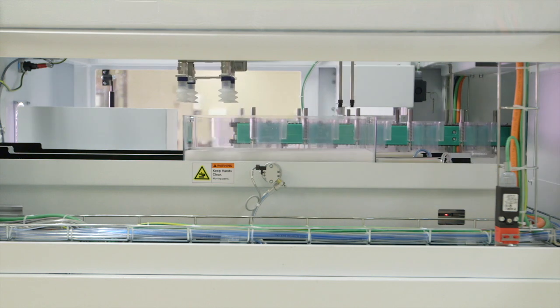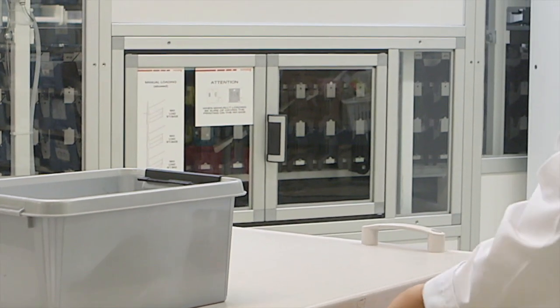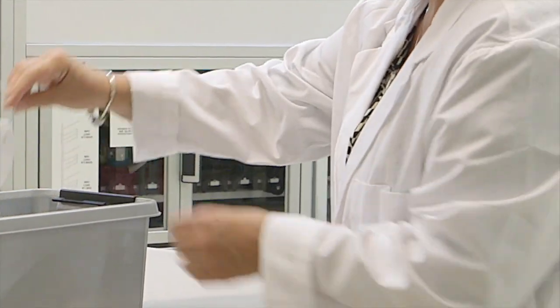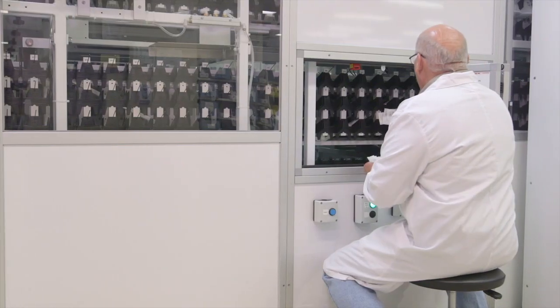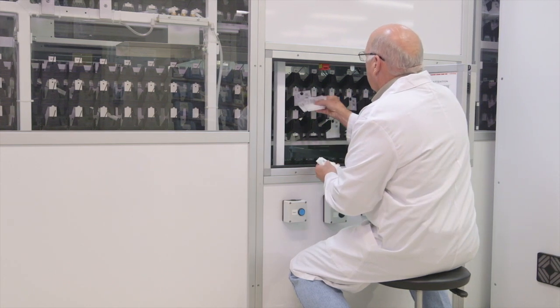With pill pick, loading, packaging, and dispensing can happen simultaneously. Stat and first doses can be dispensed at the same time as cart fill doses, so workflow is never interrupted. The patented pick ring eliminates missing doses by providing all of a patient's medications on a single ring.